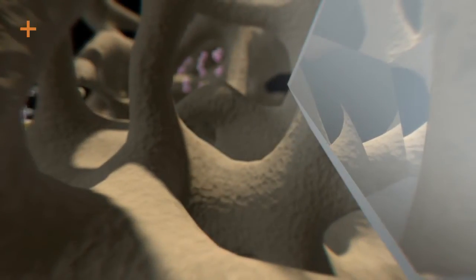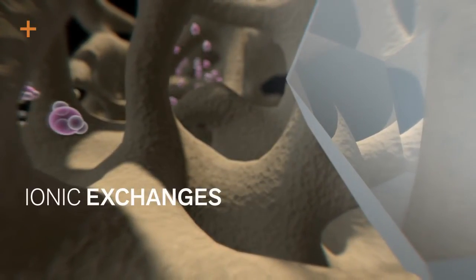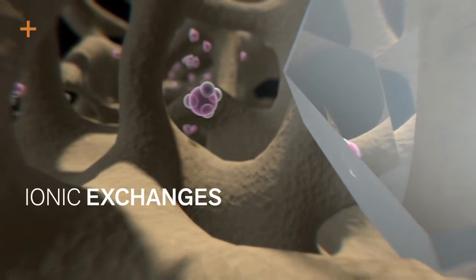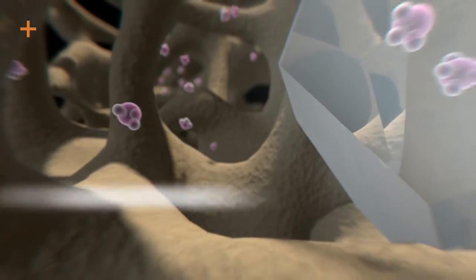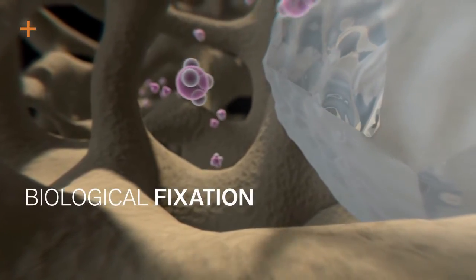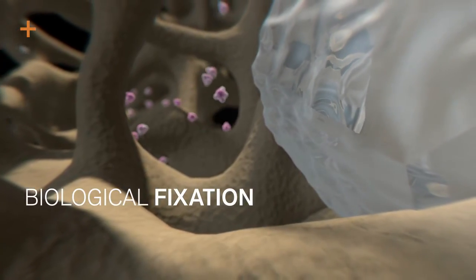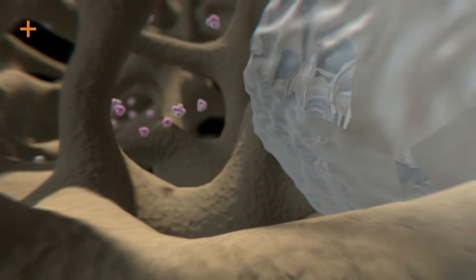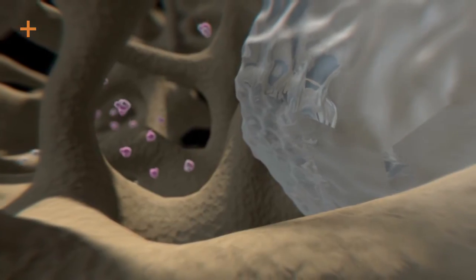Just a few hours after the implantation, ionic exchanges occur between body fluids and bioactive glass. A biological fixation is created between the biomaterial and host tissues, leading to a solid grip within the bone site.